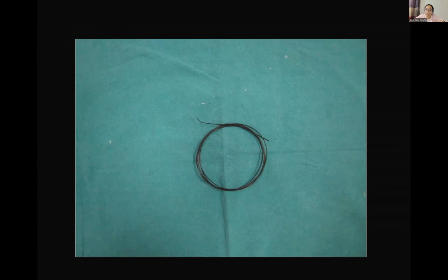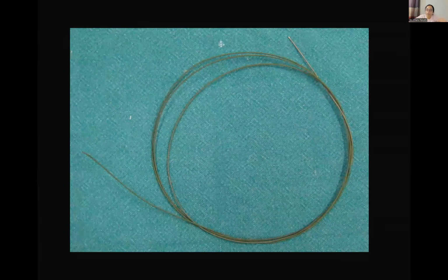This is the Terumo wire, which is most commonly used. It's black in color. Usually a curved tip Terumo wire is used. This is the stiff Amplatz guide wire. The end may be straight or may be curved. Usually green colored wires are stiff. When you take them in your hand, you'll be able to tell that they're very stiff and they keep opening, and Terumo is relatively soft.